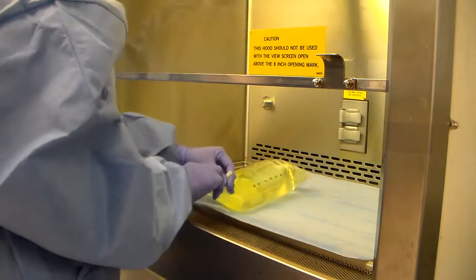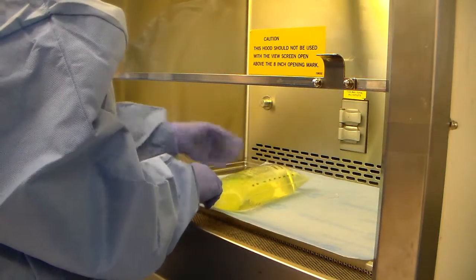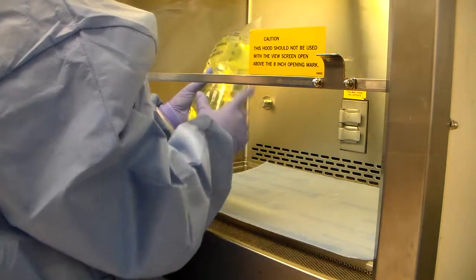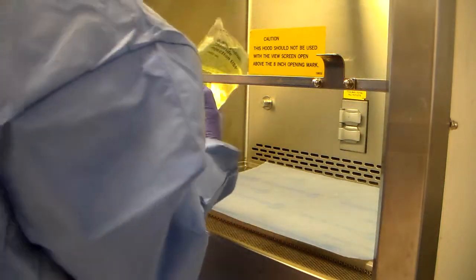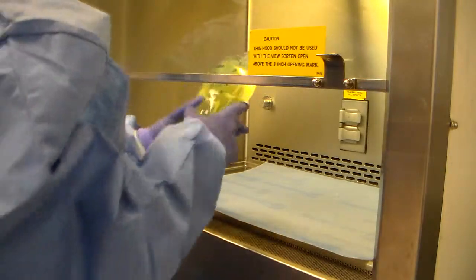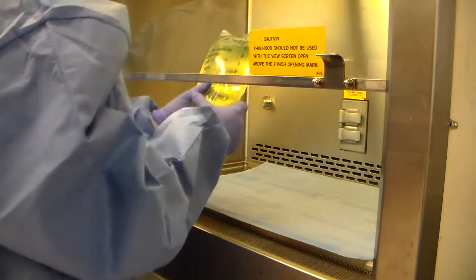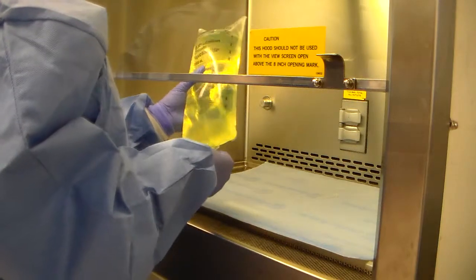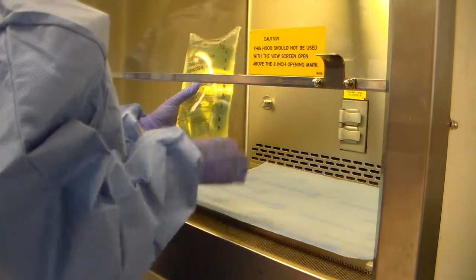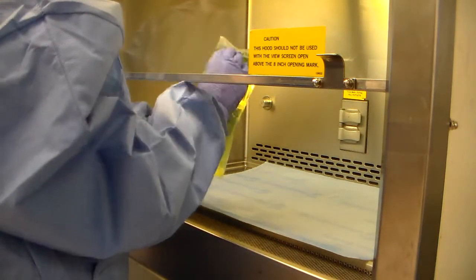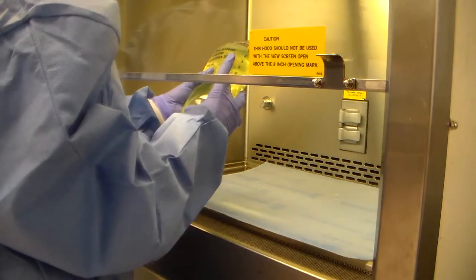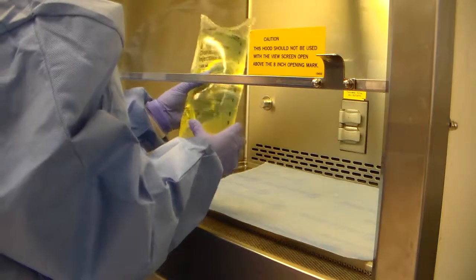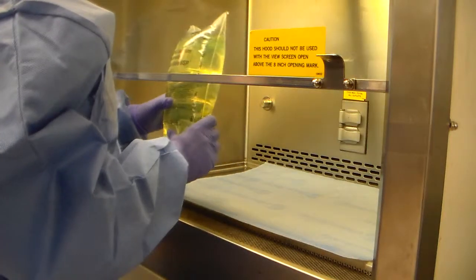We're going to cap the white IV port. We're going to clean the outside of this bag with 70% isopropyl alcohol. So you would grab your saturated lint-free paper towel, wipe this guy down with alcohol. And we do that because it's a hazardous product. Once that dries off, you label it with your hazardous label. You label it with your patient label.